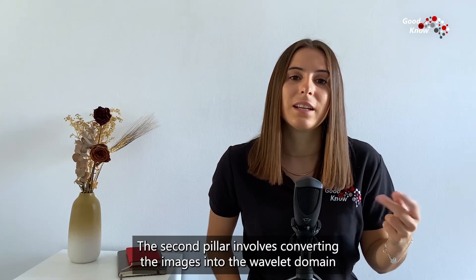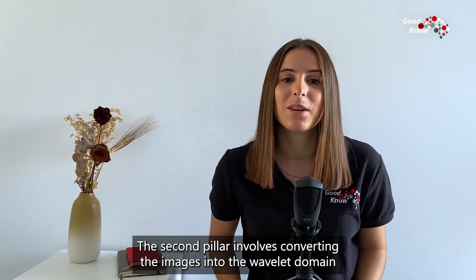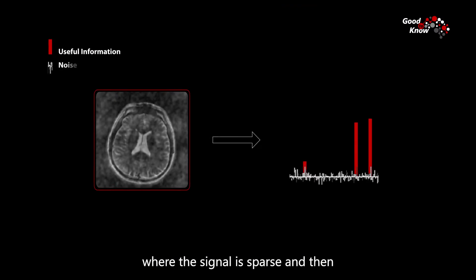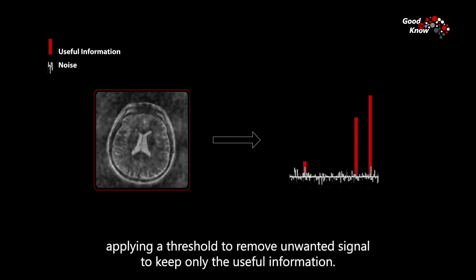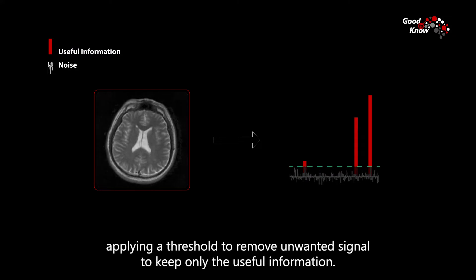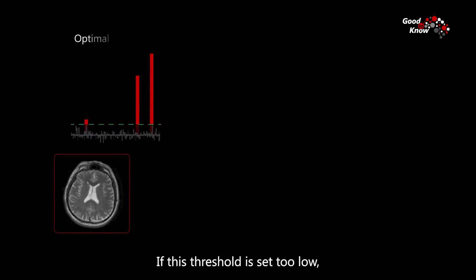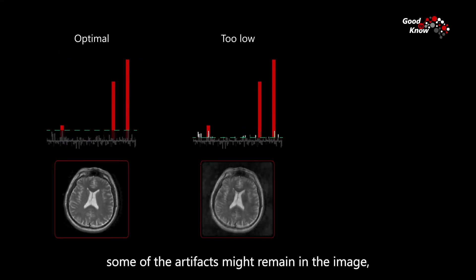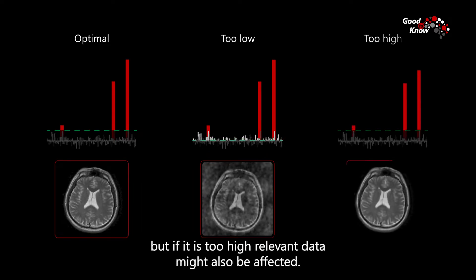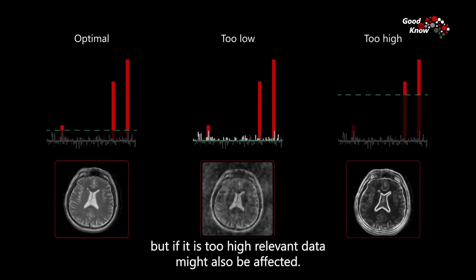The second pillar involves converting the images into the wavelet domain, where the signal is sparse, and then applying a threshold to remove the unwanted signal and keep only the useful information. If this threshold is set too low, some of the artifacts might remain in the image, but if it's too high, relevant data might also be affected.